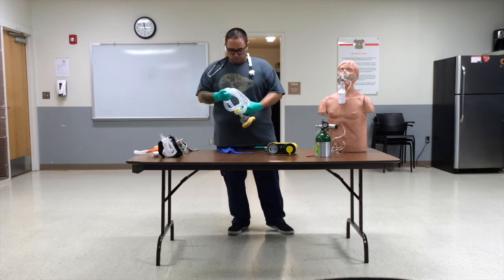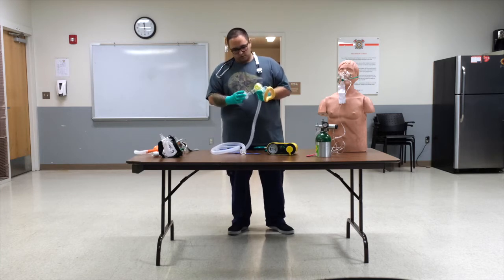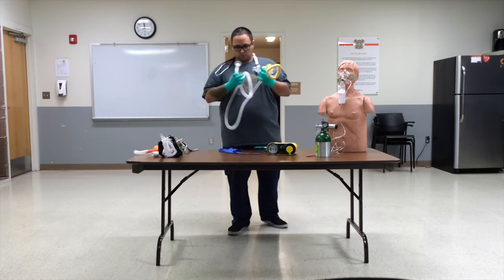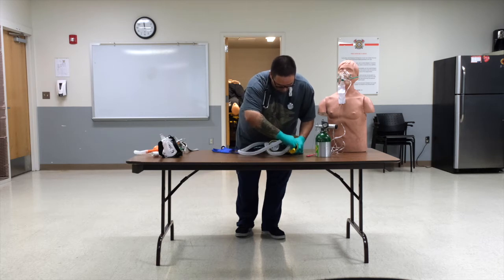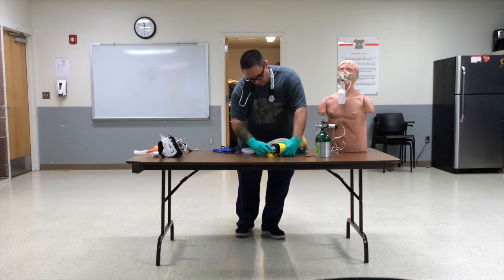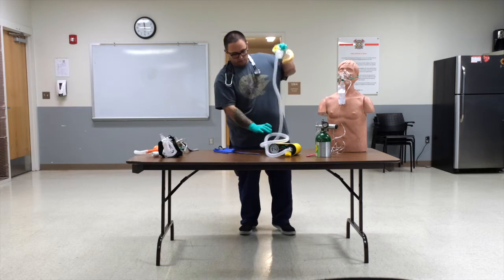So we want to make sure that our mask is connected to the circuit right here. We have a HEPA filter as well that will come in the packaging. That goes in this rotating section. This port connects right here. That yellow cap, and how that goes in is that cap pops off. You want to insert it right there and twist to make sure it's locked into place. Set your dial all the way down so that whenever you're turning it on, you're not blasting them right away out of the gate.